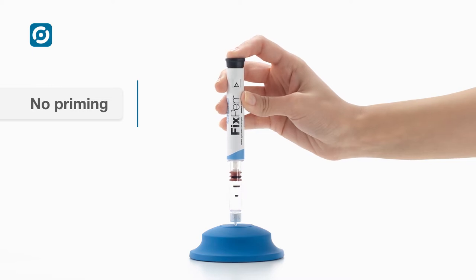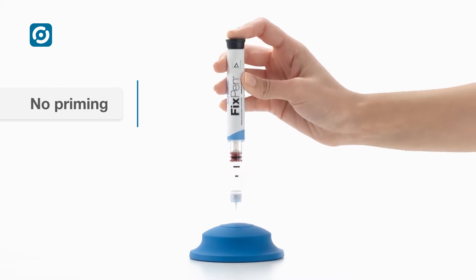Unlike many other pens, FixPen does not require priming before the first injection.